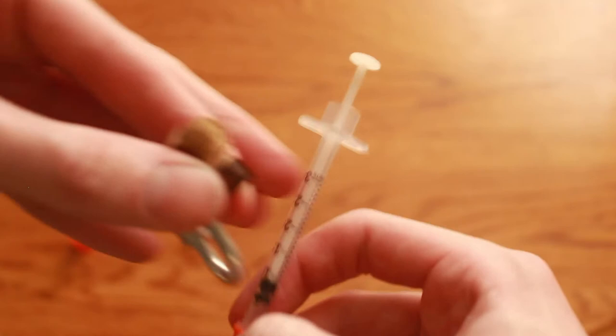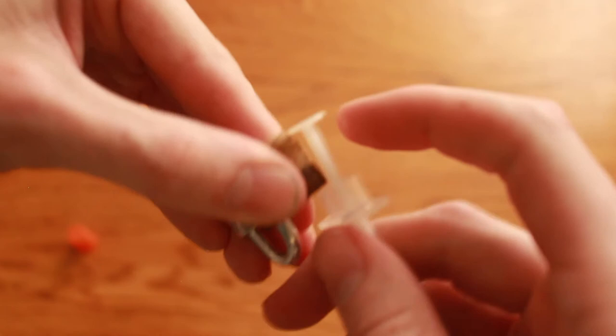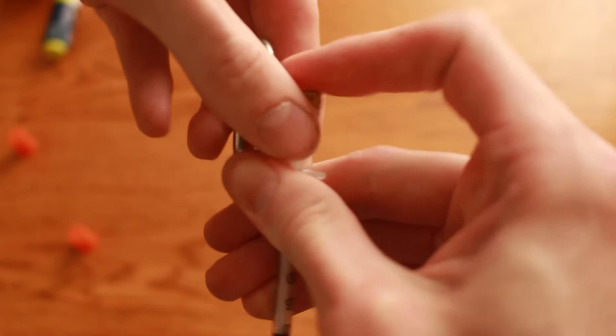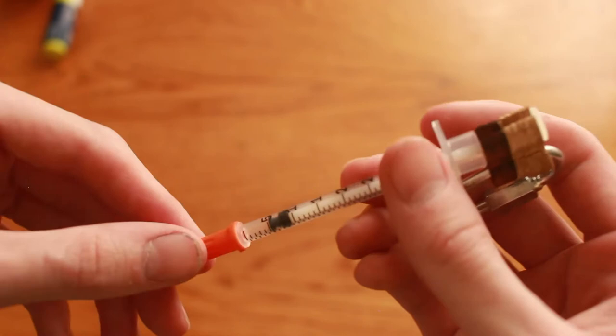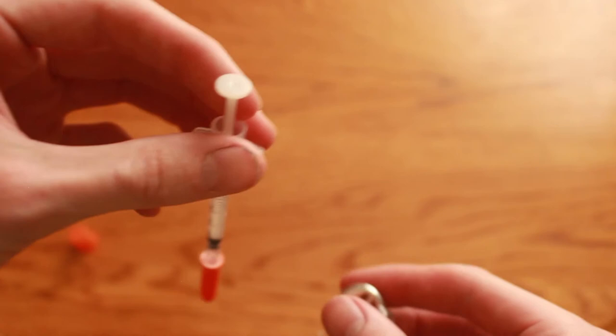These numbers correspond with units of insulin at least where the notches are. So for example at the five unit mark what would happen is that this plunger here would stop at the five unit mark. So you stick it in right here you push it down and then check that out it is exactly five units.